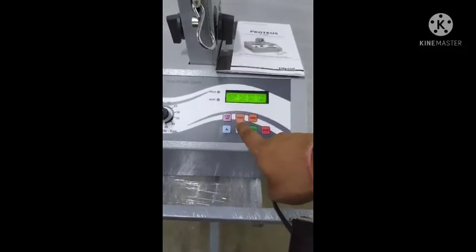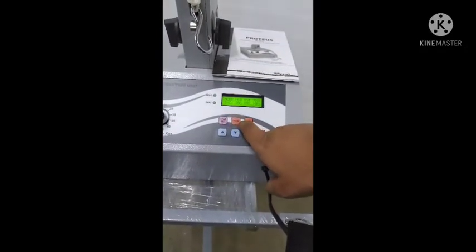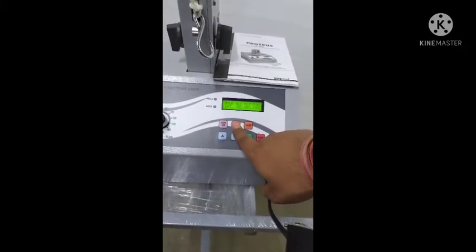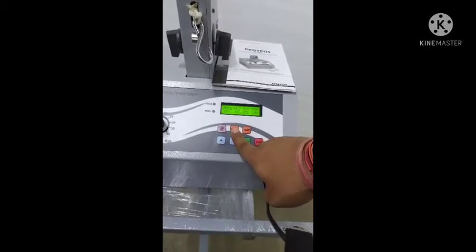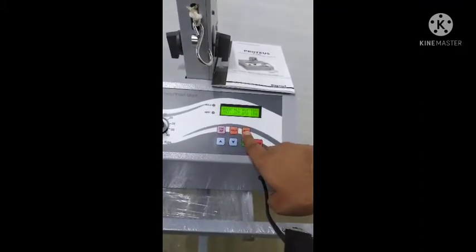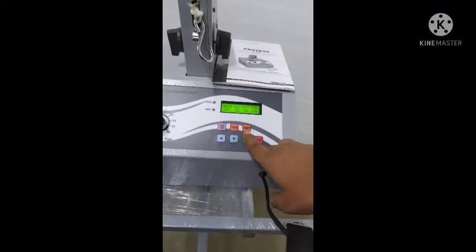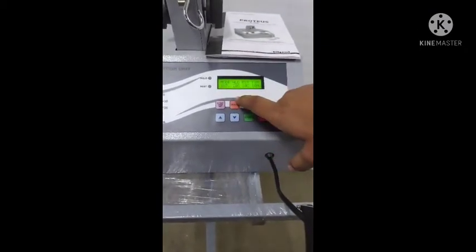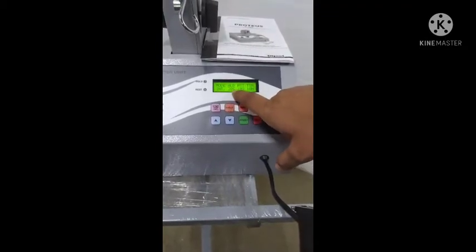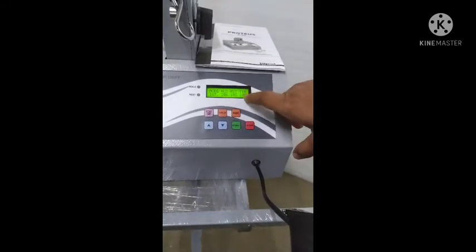These both are the hold key and rest key. These both are only effective in intermittent mode. From the hold key we can increase the duration of hold like this, and from the rest key we can increase the duration of rest like this. For example, we can select the intermittent mode and set the hold phase 20 seconds and rest phase 10 seconds and timer 10 minutes.